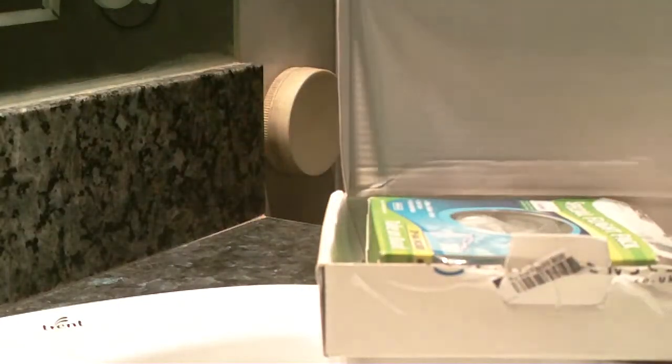Inside we can find a card with information about the store. I bought from contactlenses.co.uk — a very good site for contact lenses and cheap. This is the receipt from Contact Lenses. I paid £10.50 and I bought a Renew Multi-Purpose solution flight pack.